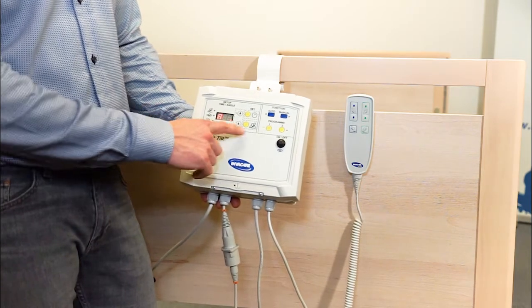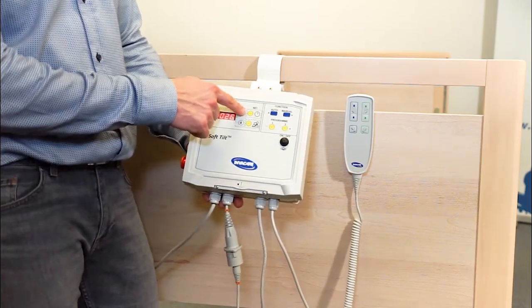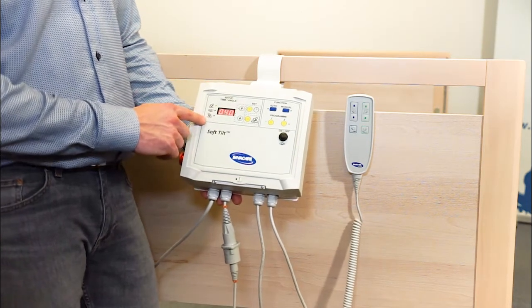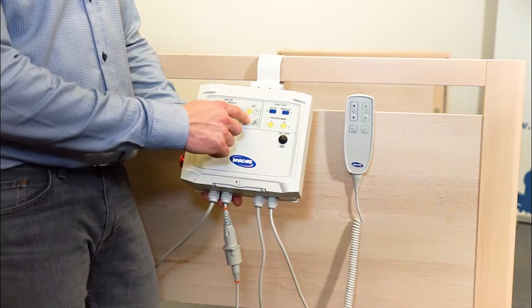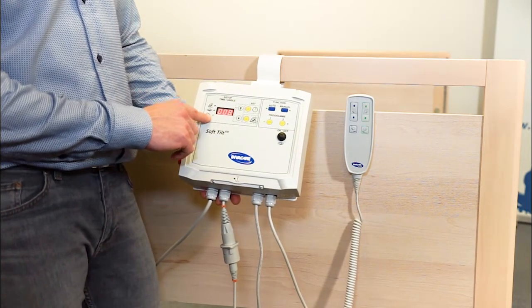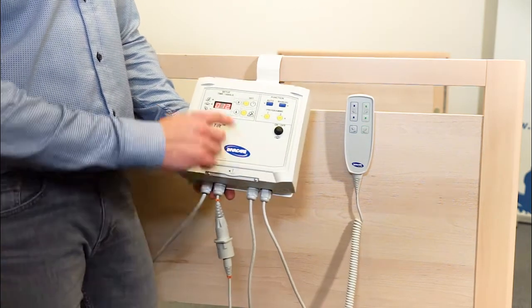A is for angle, so I press the Set Angle function. And here I can choose from 0 to 40 degrees. The maximum is 40, it can't go above 40. This is for safety. Press Set Time one more time. And the support from the opposite wing can go from 0 to 12. And the maximum is 12, as here.